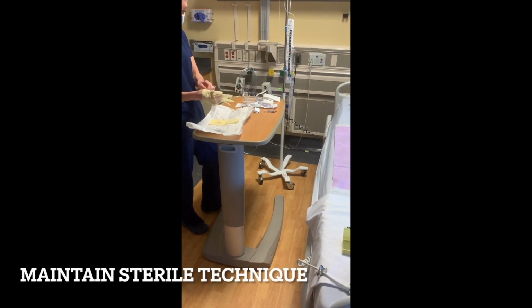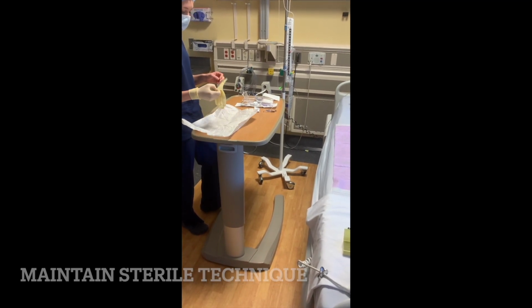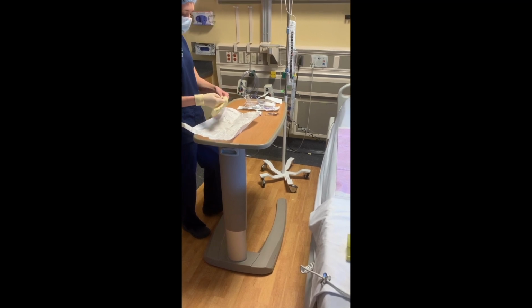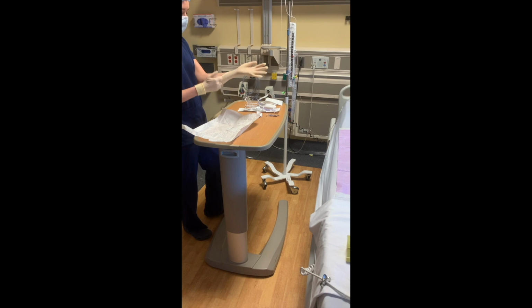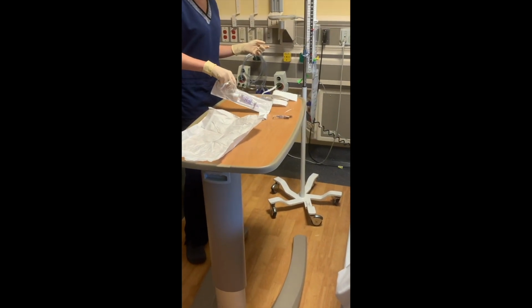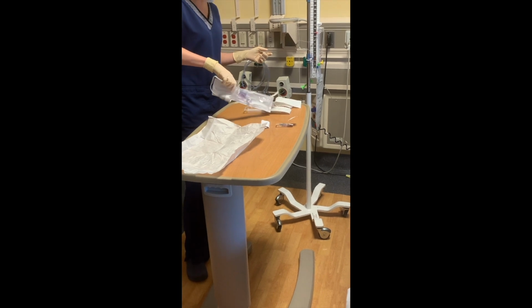It's incredibly important to maintain sterile technique throughout the setup of the external ventricular drain collecting system. Ventriculitis is tolerated very poorly, with mortality in the literature that can exceed 40%.